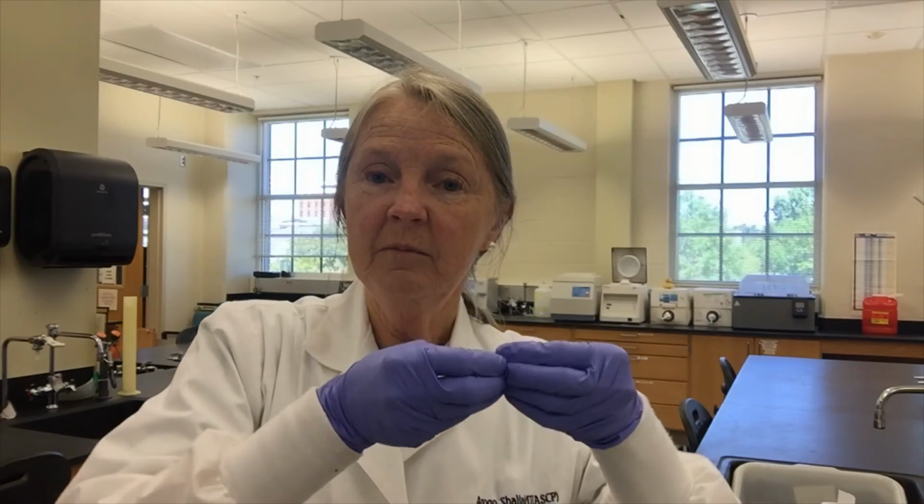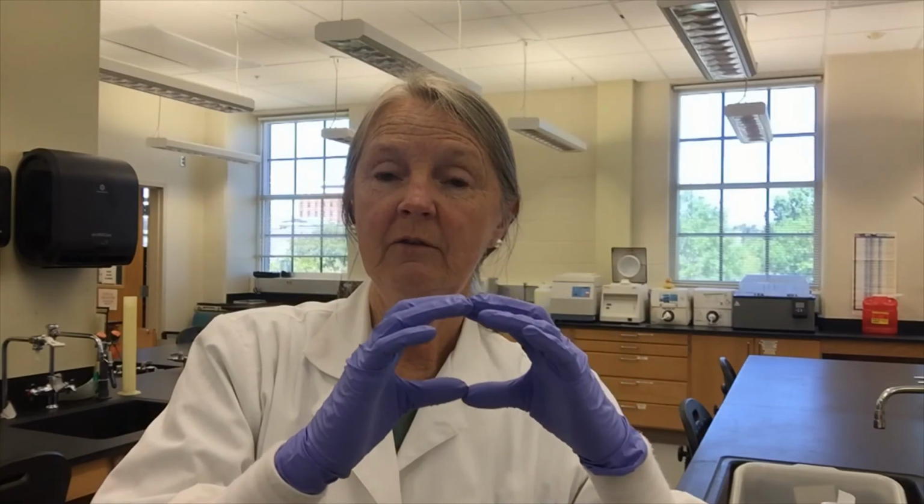And what that is supposed to do is it will bind to any of those already bound red cells that are from the baby, so they're positive and they have anti-D attached to them, and now we're giving them something else to form to make this rosette. We see 5 or fewer in 5 low power fields for our negative. We saw more than 5 in 5 low power fields for our positive controls.